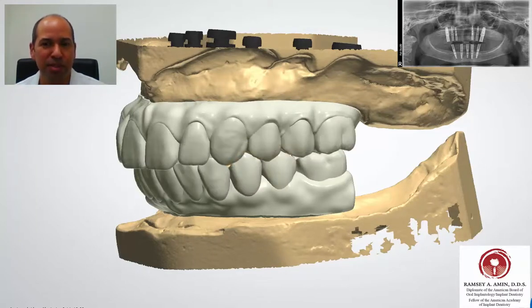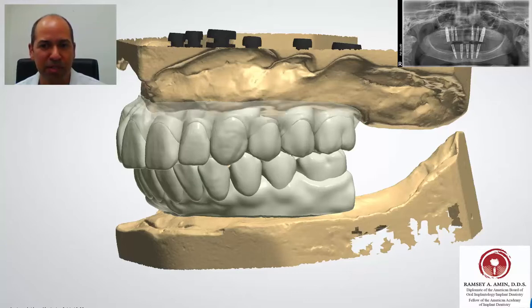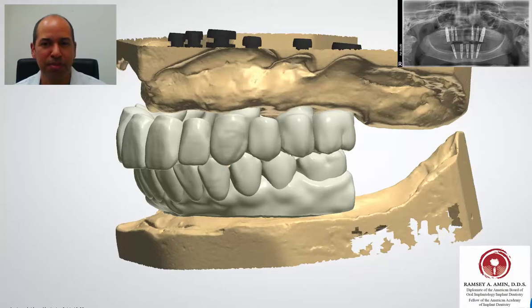You can see with the teeth removed the shape of the gum, which allows us to colorize, find the proper pink tissue, and make all the triangles of gum — the papillas — properly.